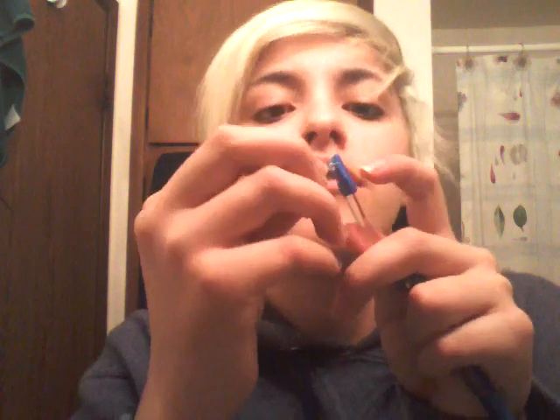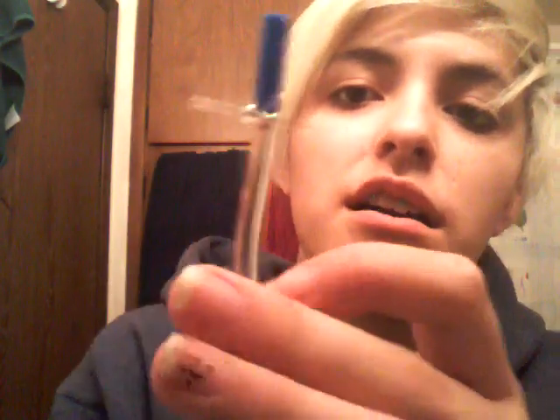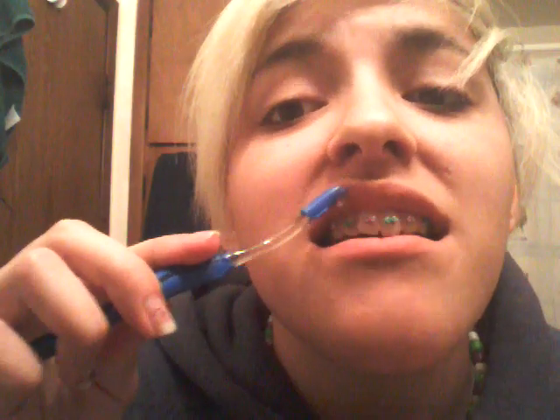I just hate packages. I just punched myself in the stomach. Here is what I was aiming for — you have to be really careful that you don't lose these little pieces, because they are really tiny. You just place it in there, like that — something like that. It goes in through there like that, see? Then you place this down so that you don't lose it and you just clean. You use a smaller one to get to the really tight space areas right here.